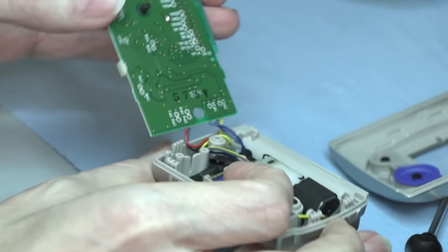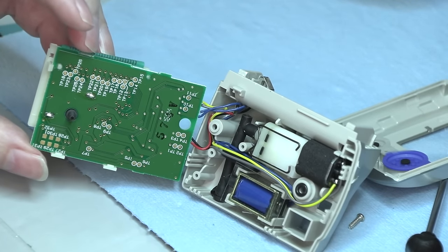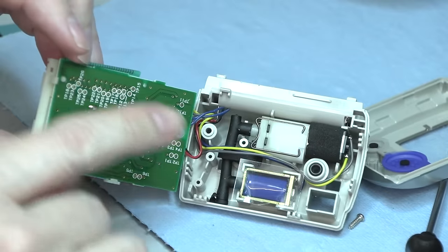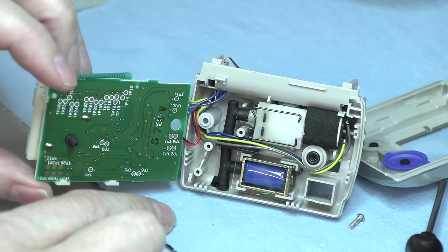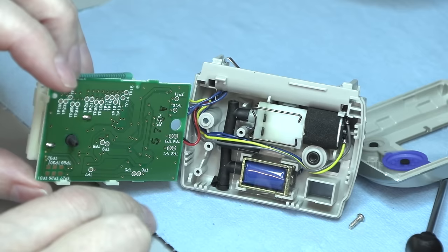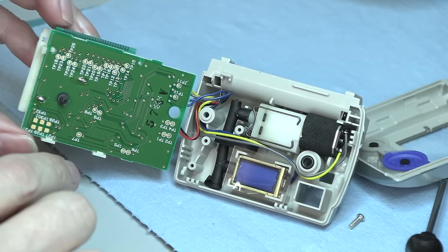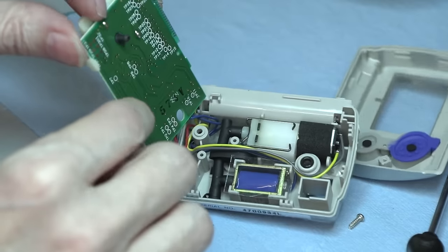And looks like, wow, this is cool. Not disappointing at all. That's like, looks like a real bonafide medical device. As Dave Jones would say, like a bought one. Yeah. So everything on this side is all on one board.